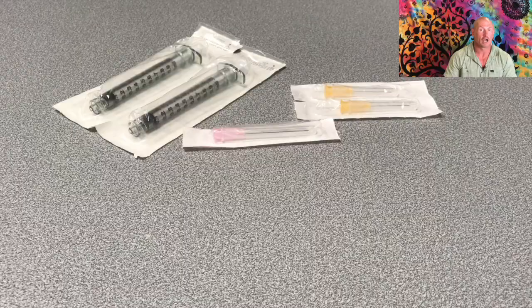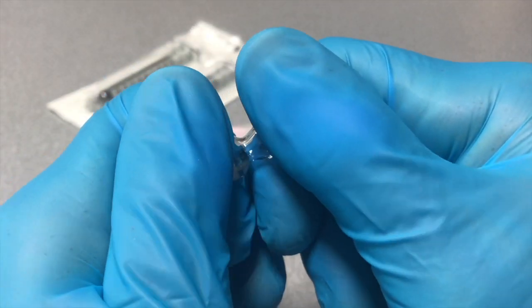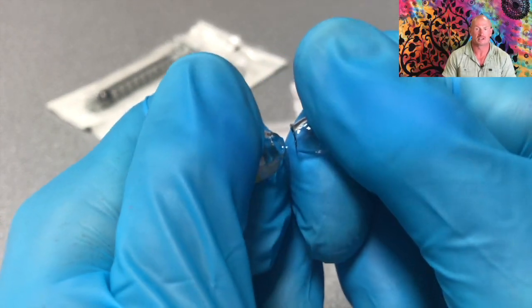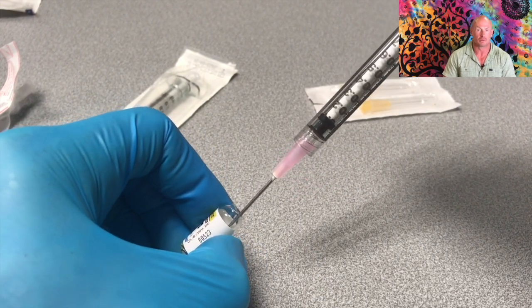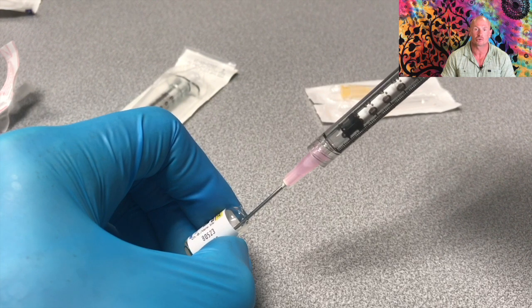Now back to the answer, I will show you how to do this. First you open the ampoule as you would normally do, and draw the oil into the first syringe. For example, I draw 0.5 milliliters, which is 125mg.